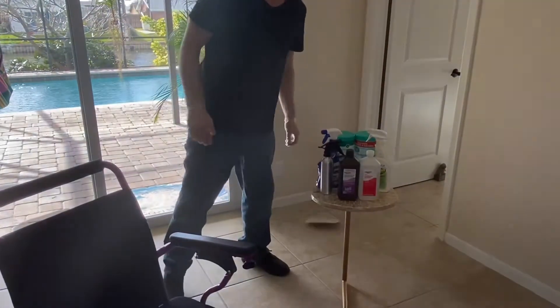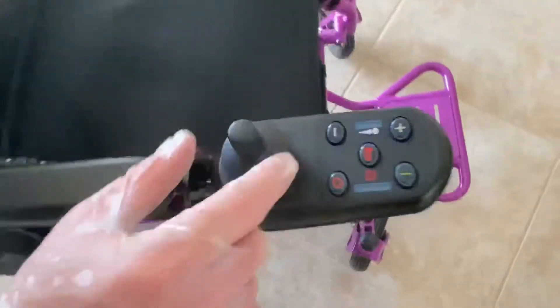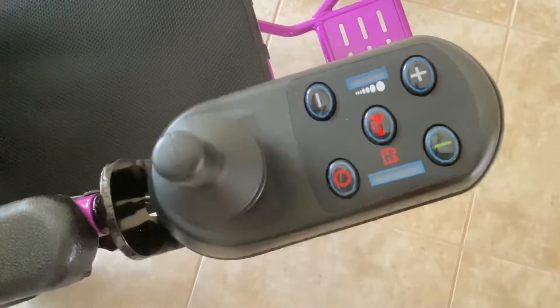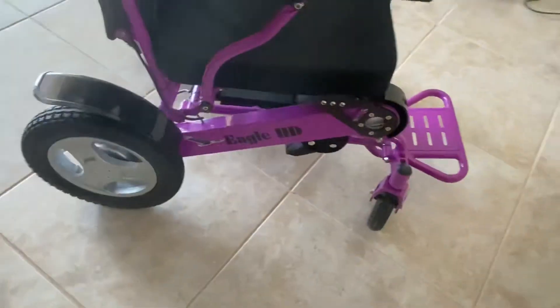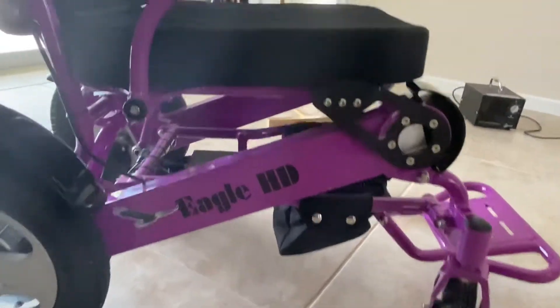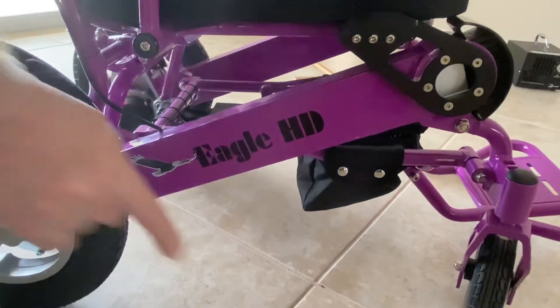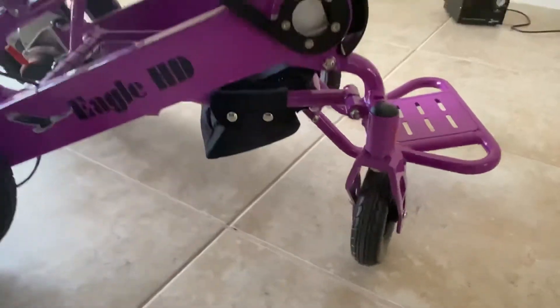In the chair, there are a lot of different types of surfaces. We have a hard plastic surface, a softer rubberized surface, grooves and little crannies, breathable fabric, memory foam underneath, polyurethane wheels, metal surfaces, zippers, deep ridges and grooves on some of the tires, and a different type of material for the front tires.